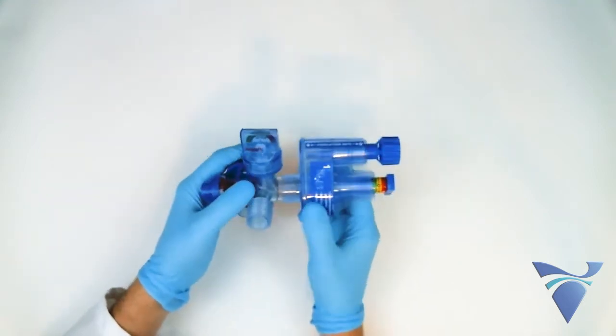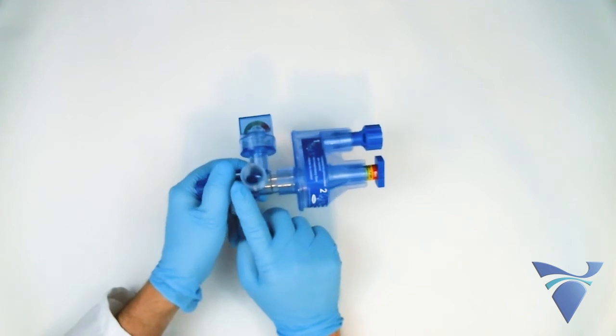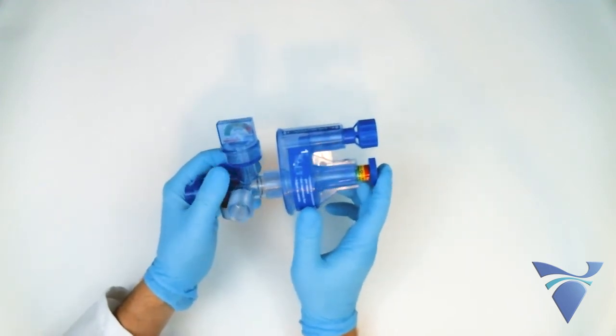The ports on the GoToVent are standard 22mm and 15mm connections. Any standard breathing circuit accessory can be connected.